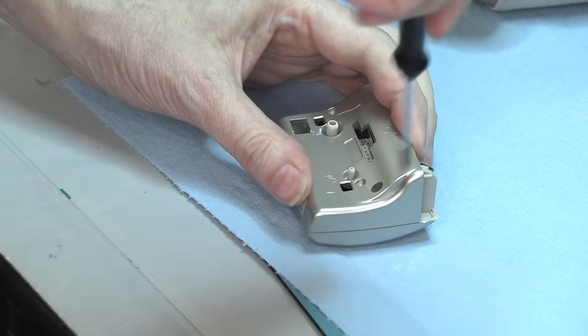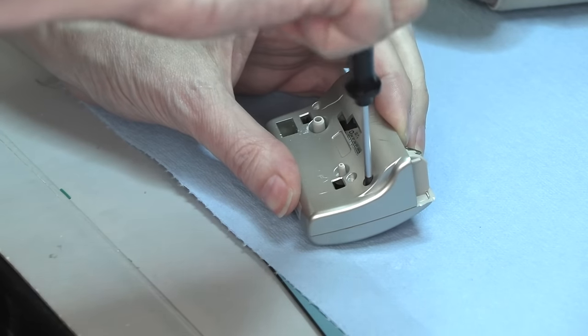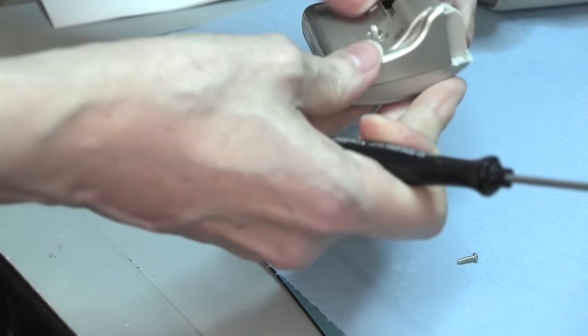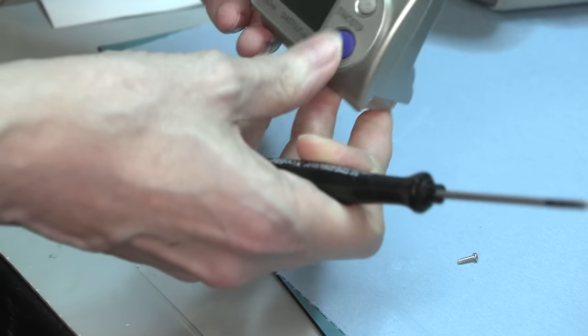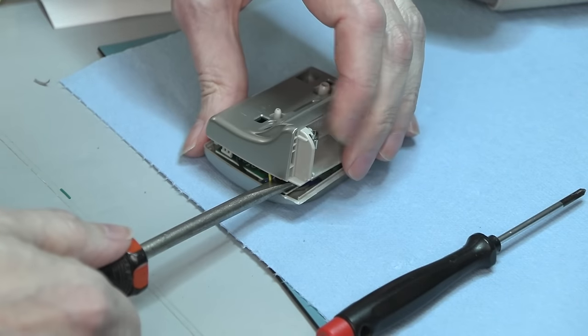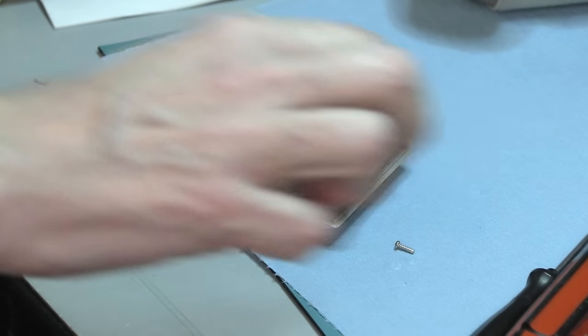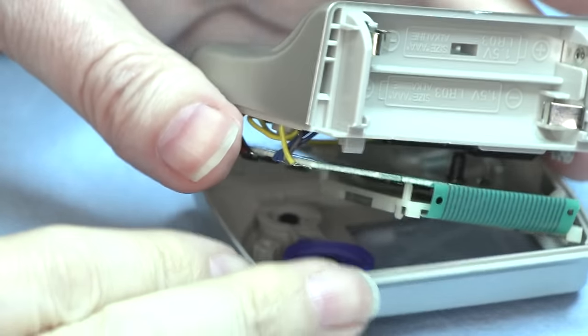There we go. Yeah. Is that it? Just one screw. I don't see any other screws. There we go. Now we're in. Yes.